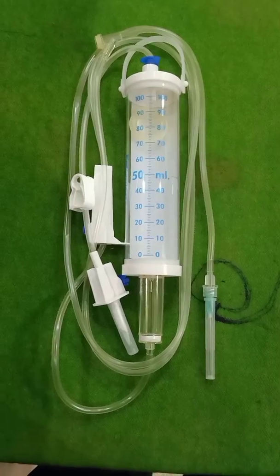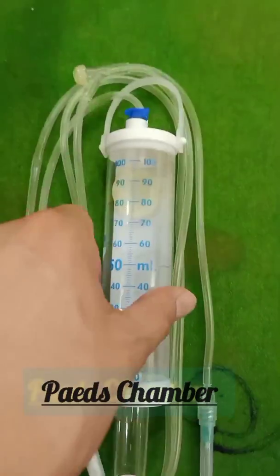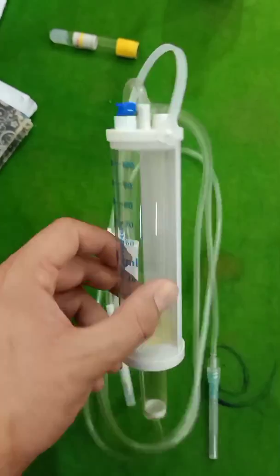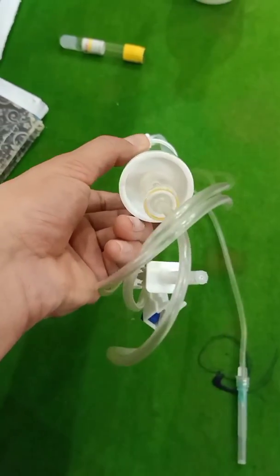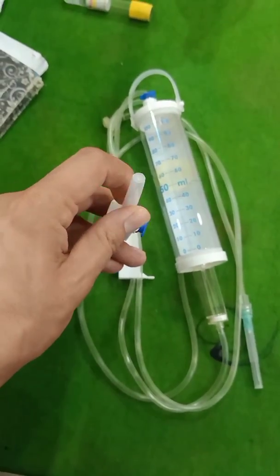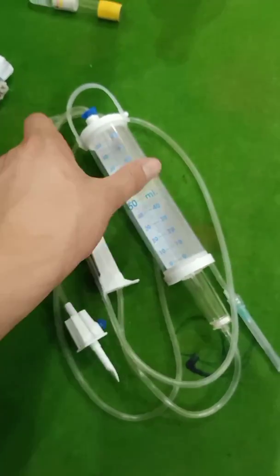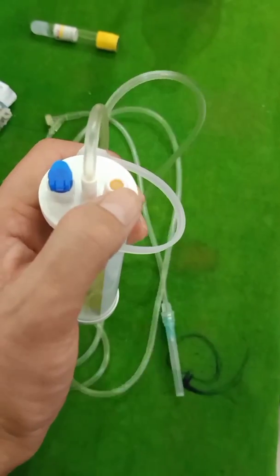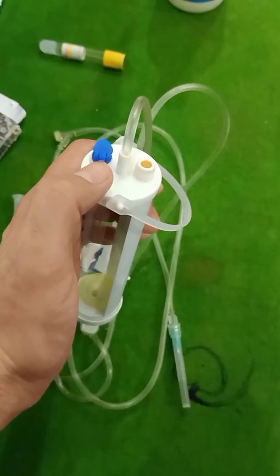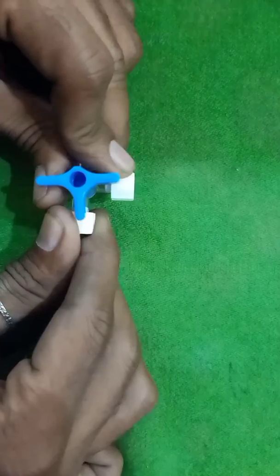This is the burette, also known as the pediatric chamber. It has a capacity of at least 100 ml. The upper end you see on the screen is used for filling, and the other end is attached to the cannula. It is used to administer medication.